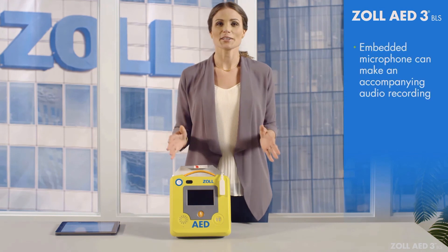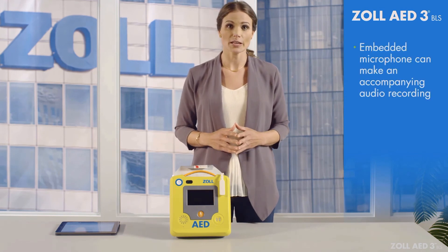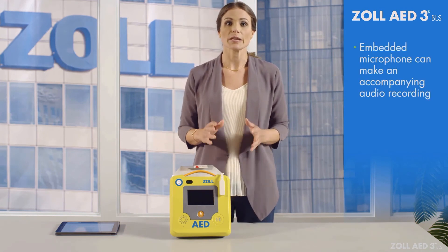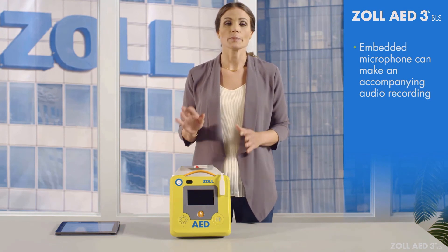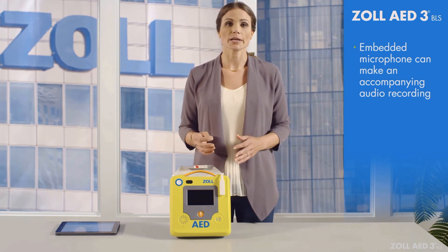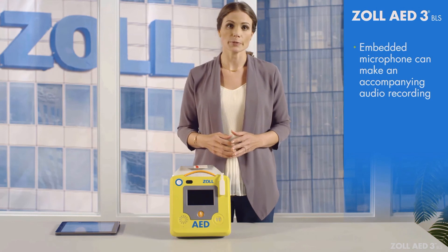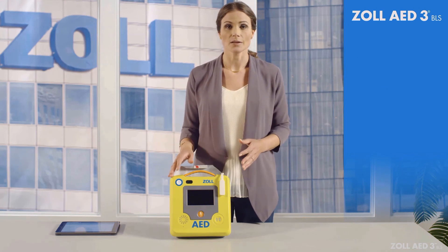Finally, for the best possible debriefing, the Zoll AED3BLS is equipped with an embedded microphone that can be activated to make an audio recording to accompany the detailed information from the event data file.